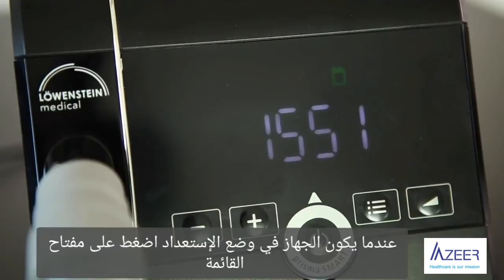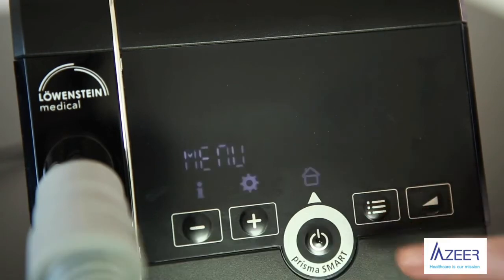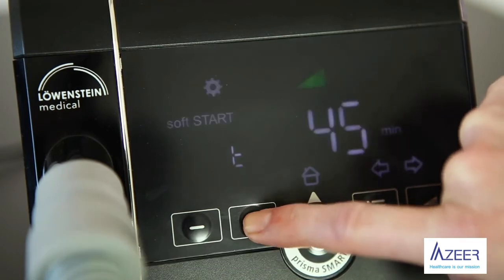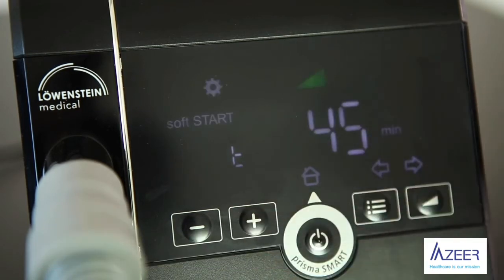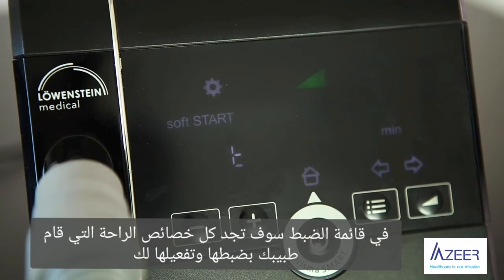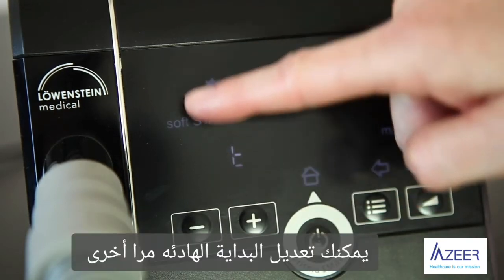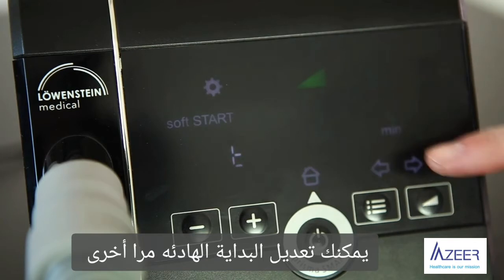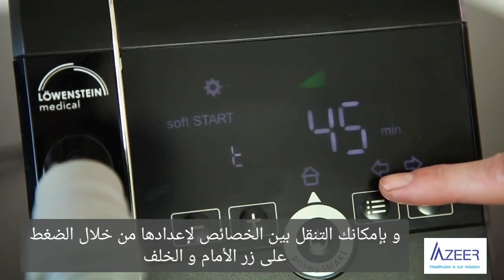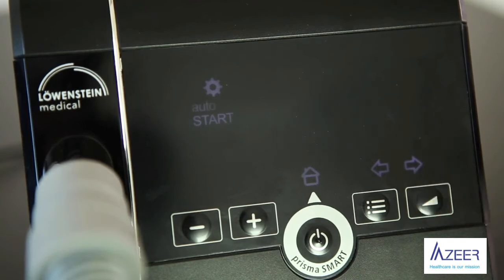With the device in standby mode, press the menu key to call up the setting menu. In the setting menu, you will find all the comfort parameters that your doctor has activated for you. Again, you can adjust the soft start. By pressing the arrow button backward or forward, you can reach the next parameter.